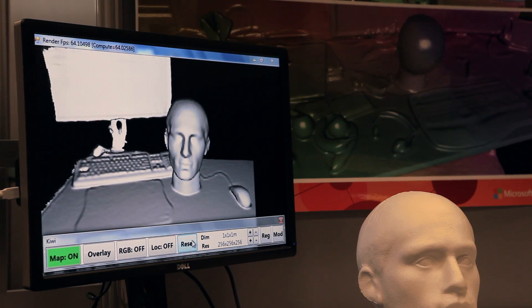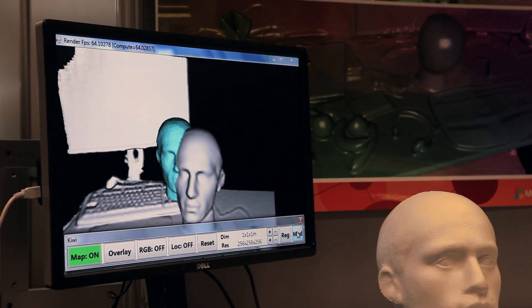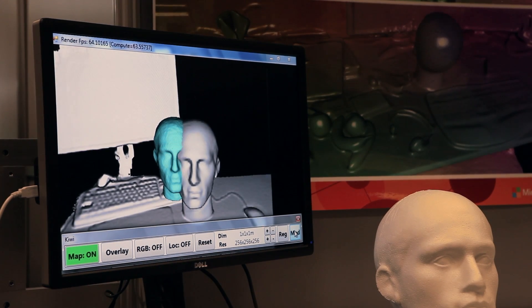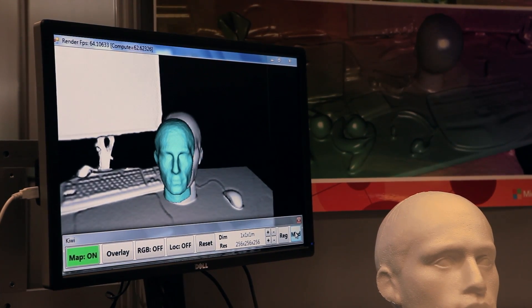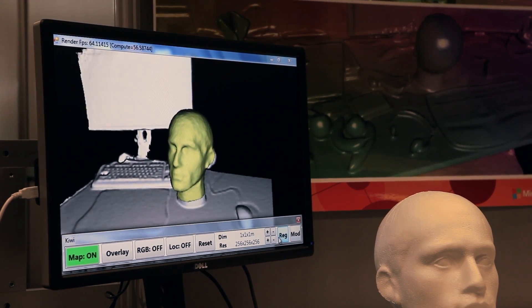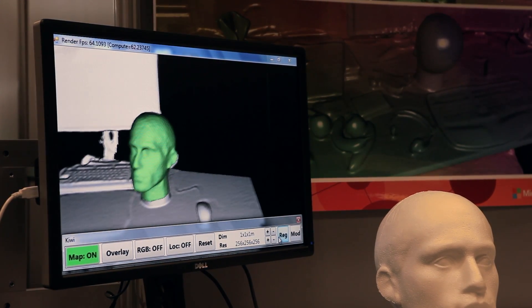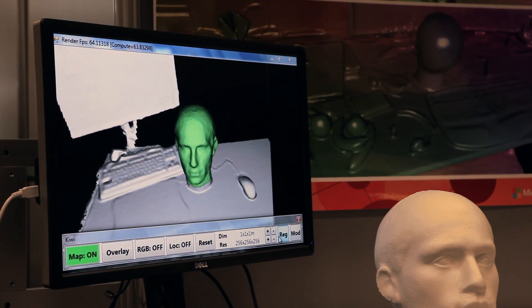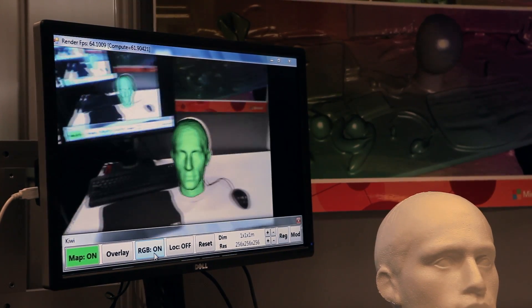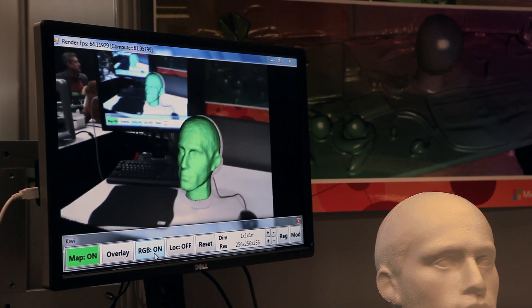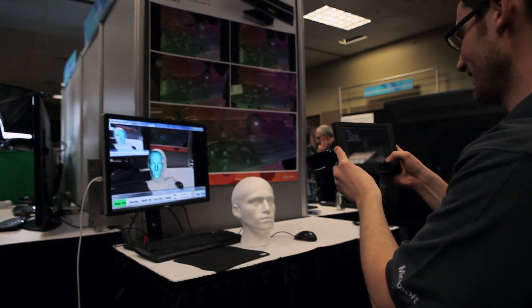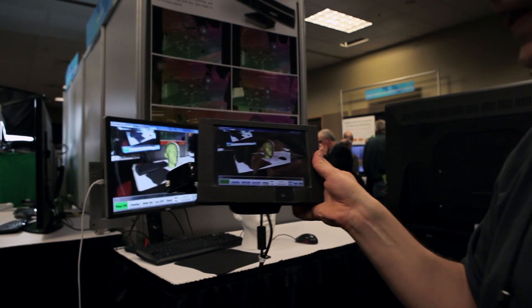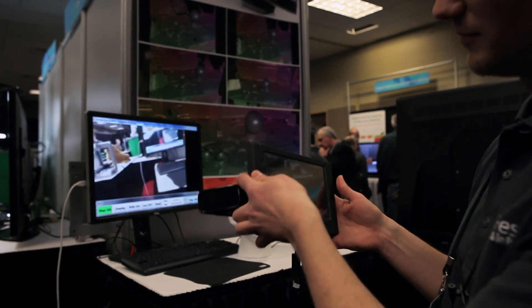I can load up the scan that has been taken previously before the operation and where all the planning and the diagnosis was done. And when I bring these two close together, I can register them and you see that the virtual 3D model and the actual 3D world merges into one view. And now if I show you the real world, this is what we call augmented reality. So we overlay a virtual object onto the real world and you can see exactly on the tablet what I would see with my normal eyes. But I also get the information from the 3D model.